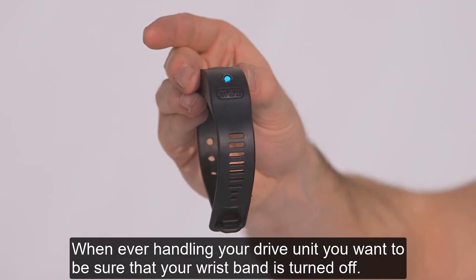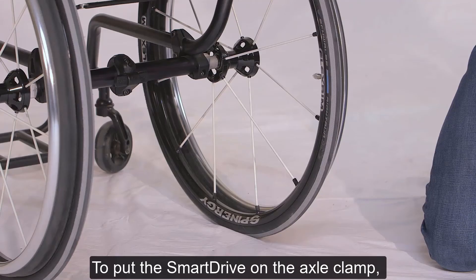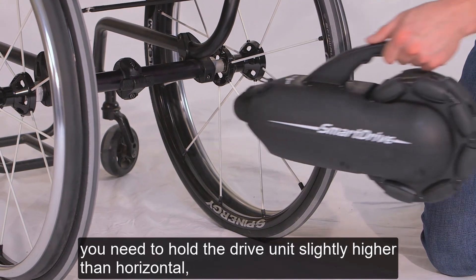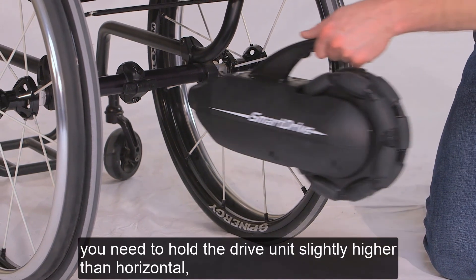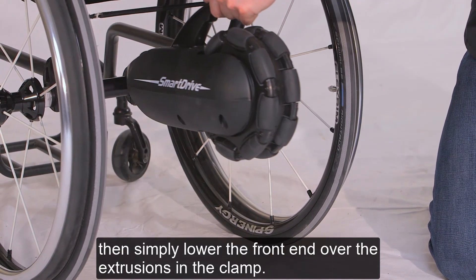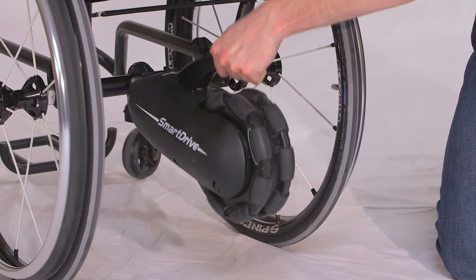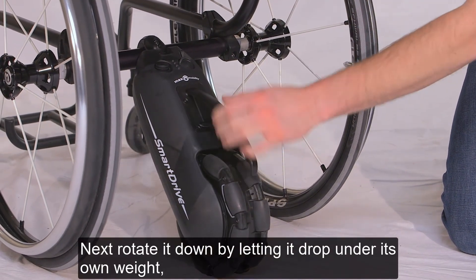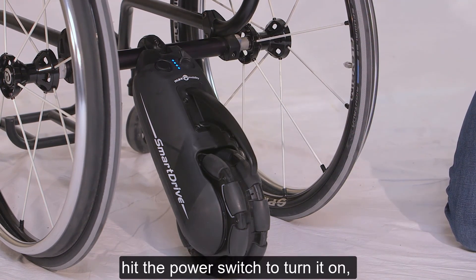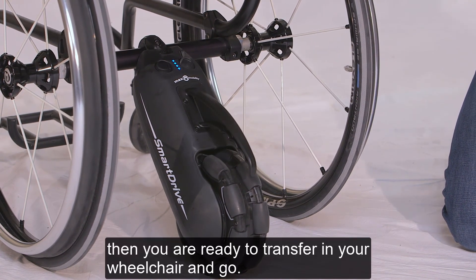Whenever handling your drive unit, you'll want to be sure your wristband is turned off. To put a Smart Drive on the axle clamp, you will need to hold the drive unit slightly higher than horizontal. Then simply lower the front end over the extrusions in the clamp. Next, rotate it down by letting it drop under its own weight. Hit the power switch to turn it on. Then you're ready to transfer into your chair and go.